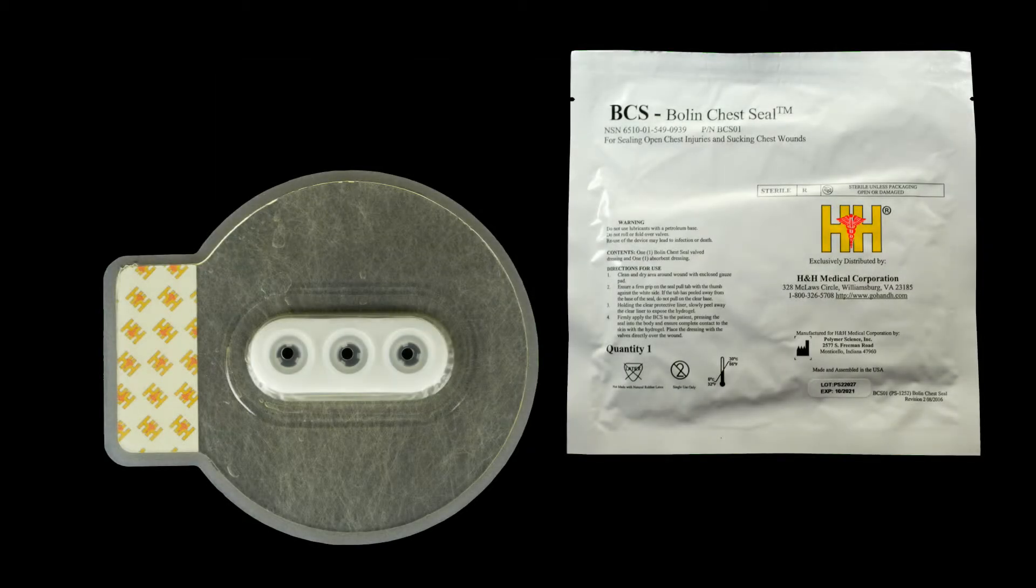The Bolin Chest Seal from H&H Medical Corporation is a sterile valve chest wound dressing for treating open pneumothorax and preventing tension pneumothorax.